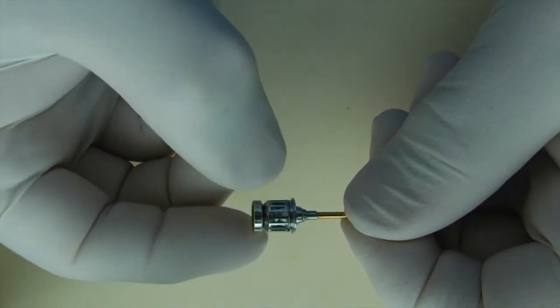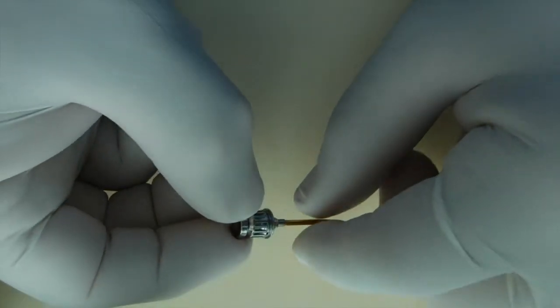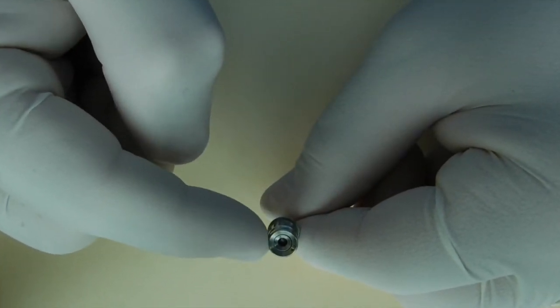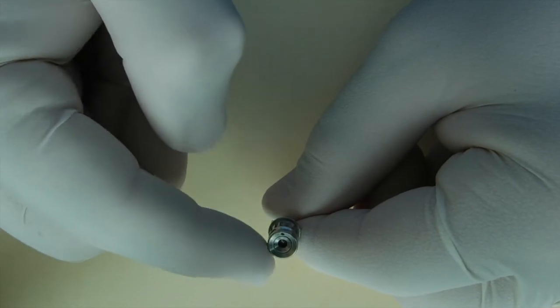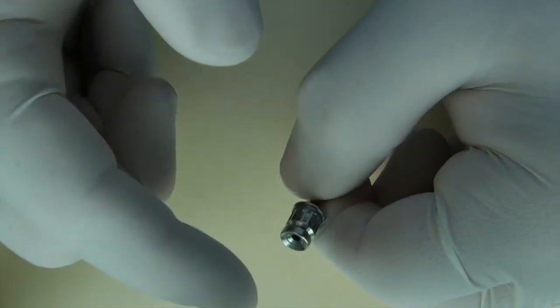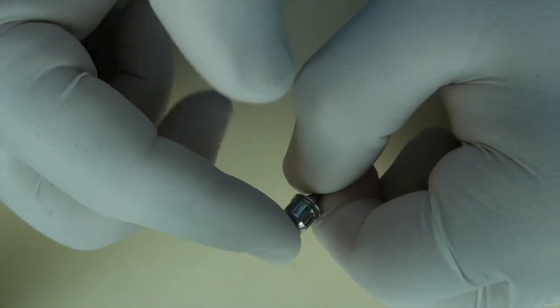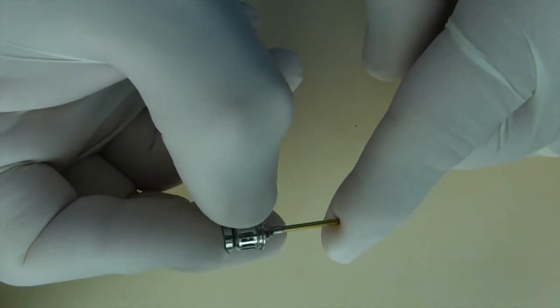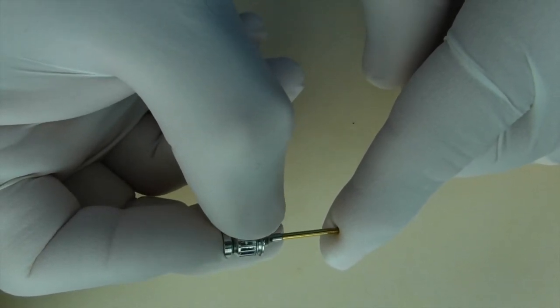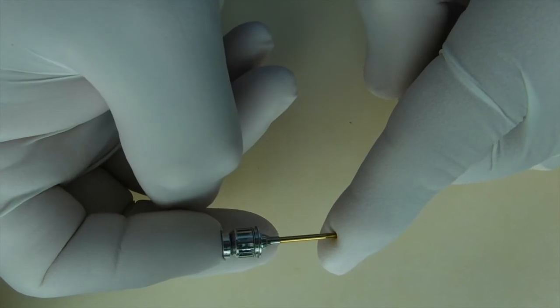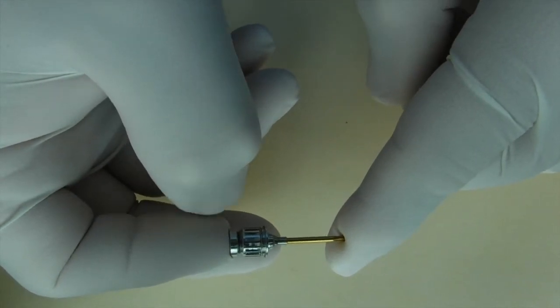As I said earlier, this can be used as a standalone wrench. And if you look at the top portion here, there's a little portion of the driver that can actually spin, as is evidenced by the black dot here. And that's so you can use finger pressure on that, engage it in the screw, and then twist that to hand tighten the implant screw of the abutment prior to torquing.